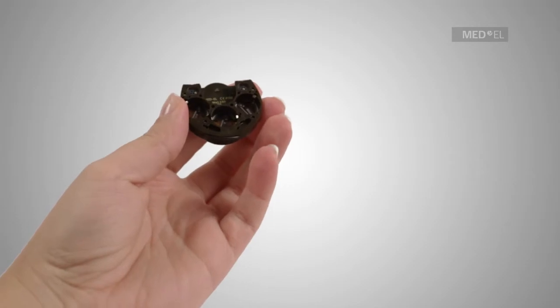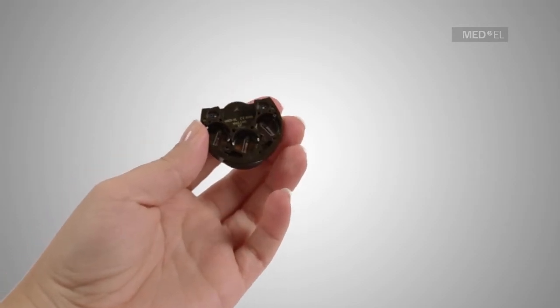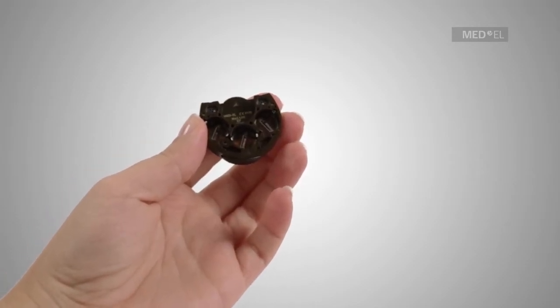Before inserting the new battery set, make sure that the battery contacts are clean and dry.